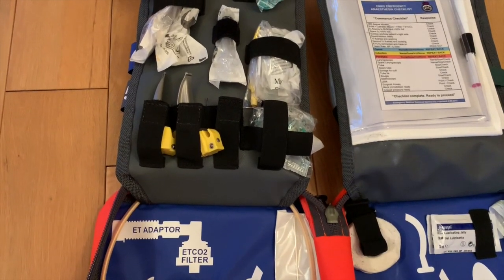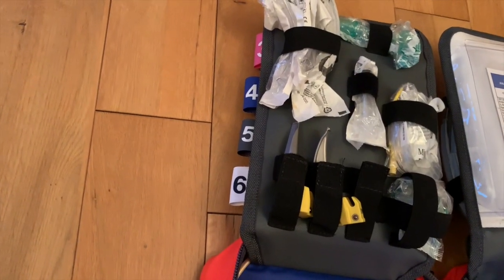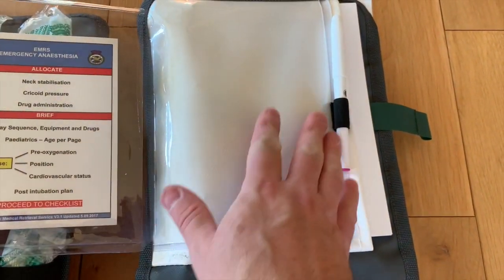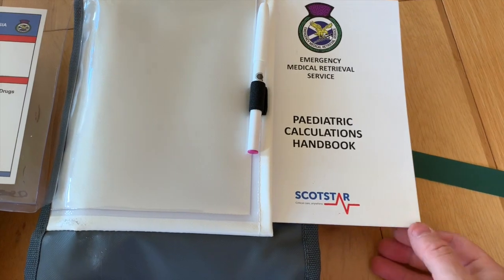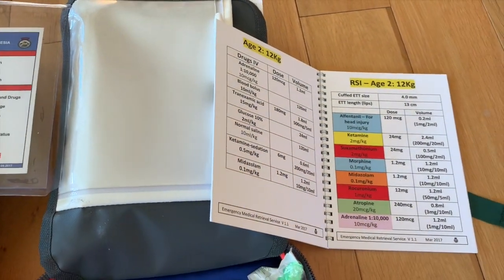The actual tubes themselves are stored here from a size three to a size six, all of them whole-size tubes as opposed to half. We do have space for a two-and-a-half if that is a requirement. Within this area we have an information board consisting of checklists, a whiteboard to write on with a marker pen, and a clinical support tool. Within this pouch we've currently got an age-per-page, which will come in particularly useful within the pre-hospital environment.